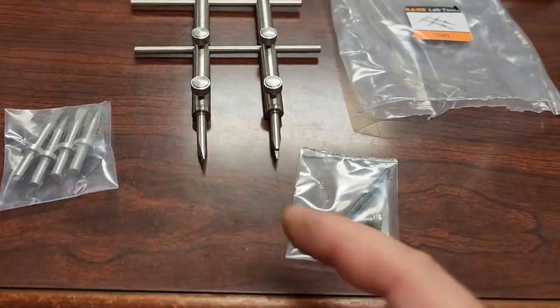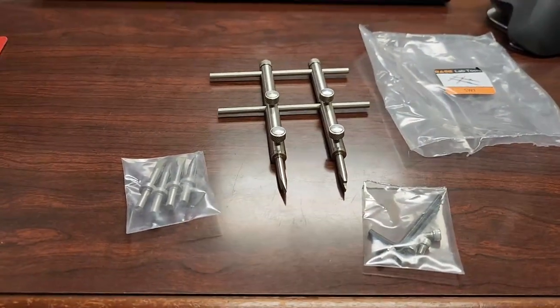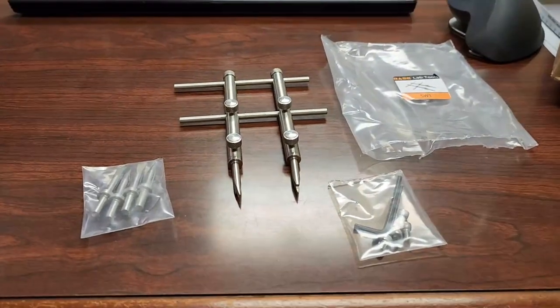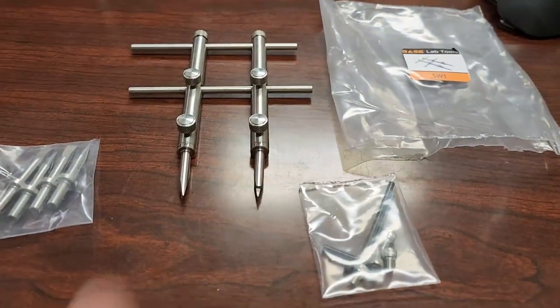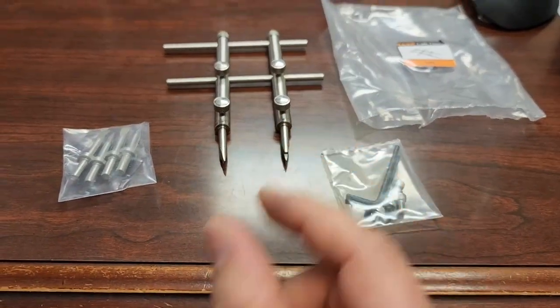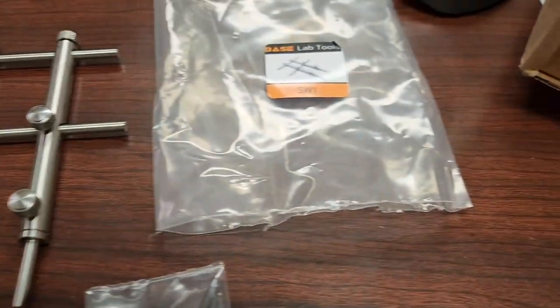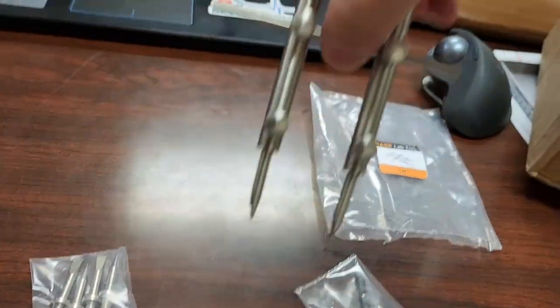I'm going to use this for a rather special type of nut that's made out of plastic, located on oxygen blenders — a very special type of oxygen blender. This little retaining nut is a pain to get off, but with this I've already tested it and it works perfectly. The flat blades are ground to the exact length I need and they cover about one centimeter span. This is the BaseLab Tools SW1 — a fantastic little spanning wrench.